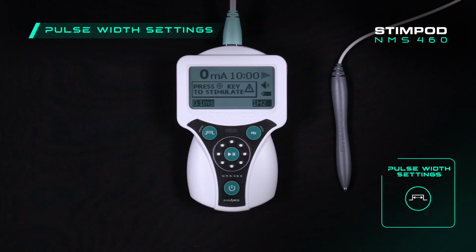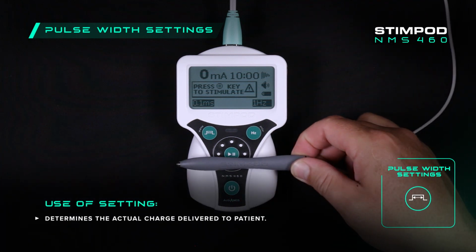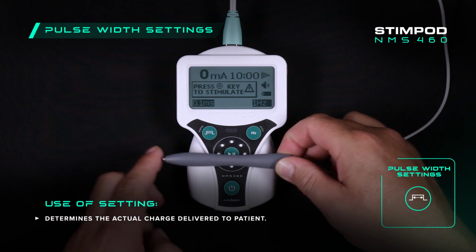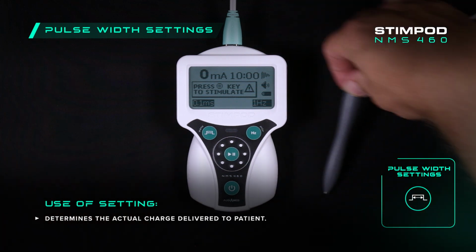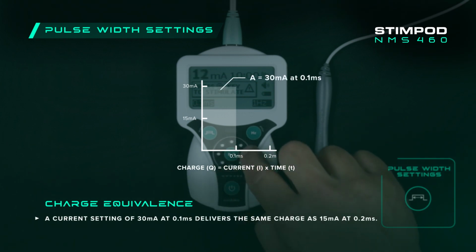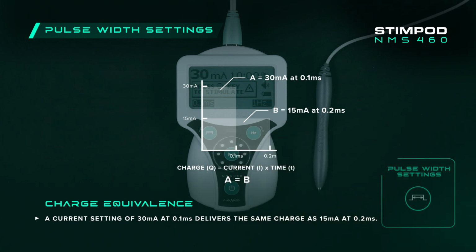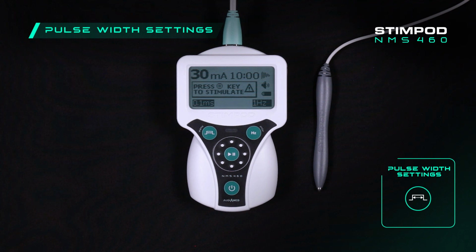How do we use the different pulse width settings? The pulse width settings, along with the current setting, determines the actual charge delivered through the treating probe. A current setting of 30 milliamps with a pulse width of 0.1 milliseconds will deliver the same charge as a setting of 15 milliamps with a 0.2 milliseconds pulse width. What does this mean for you?